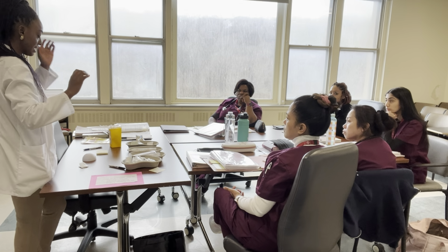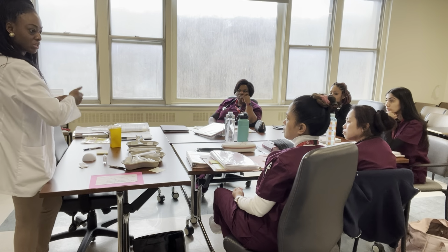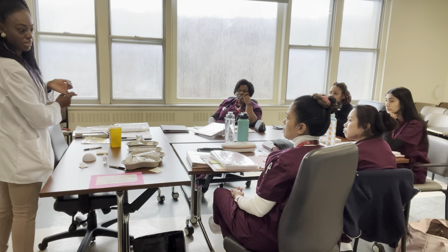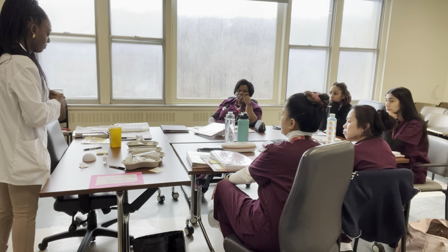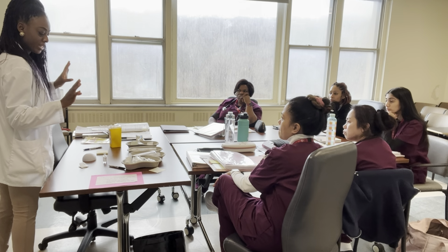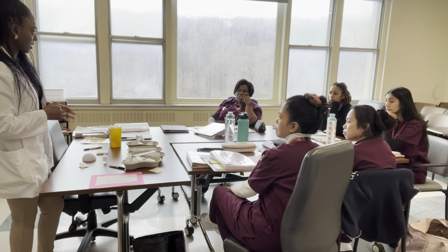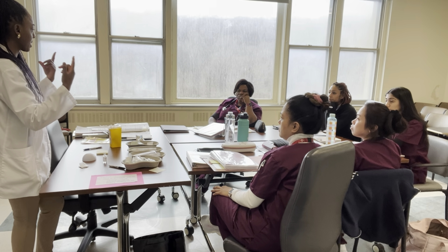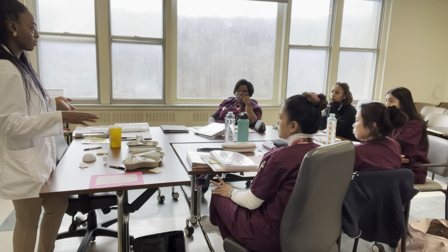I don't know the exact number, but it's not as long as when they're injecting it into the person's IV, you understand what I mean? So I could be wrong. I'll correct it if I am. But I believe it's about 5 to 10 seconds. Good. Is that good? So now I want to have you all practice the same process. Make sure you're comfortable with it.